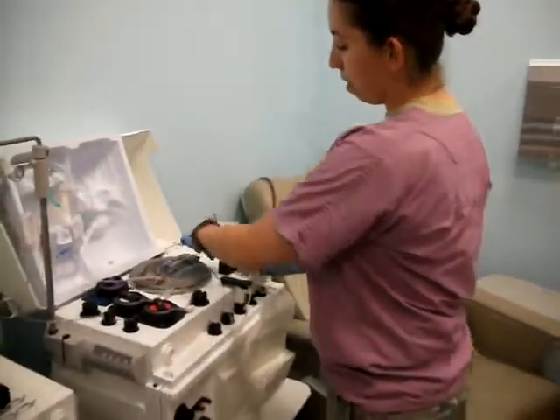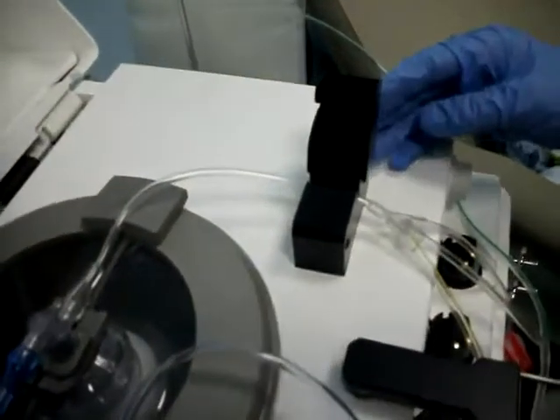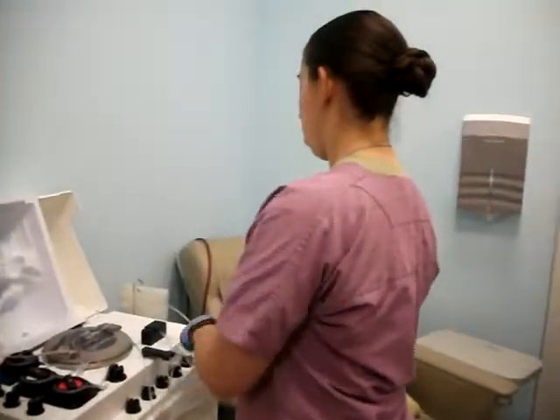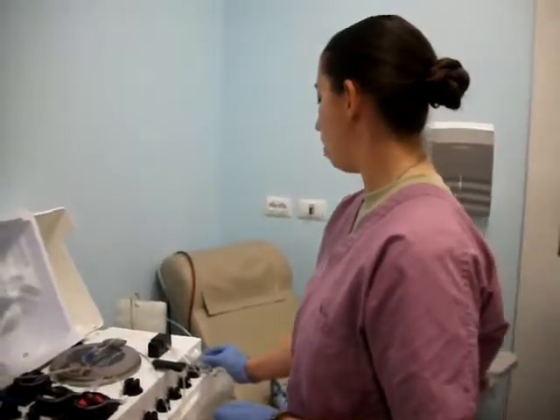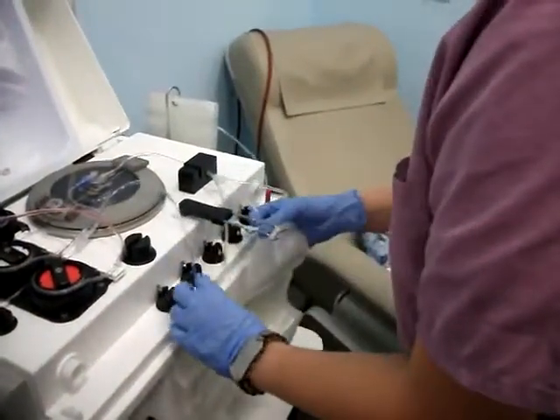Go ahead and put this line right here in the sensor. Make sure you floss it well, because sometimes it won't register it being there and you'll have serious issues later on. Then go ahead and put your SPM on the filter there.